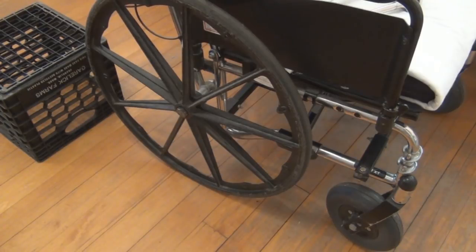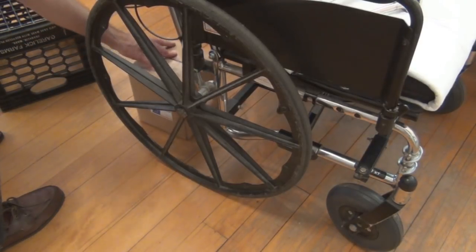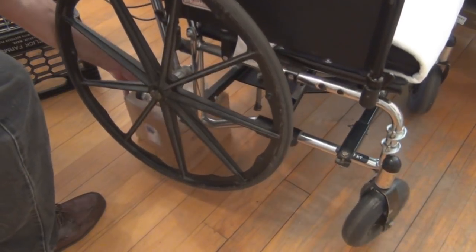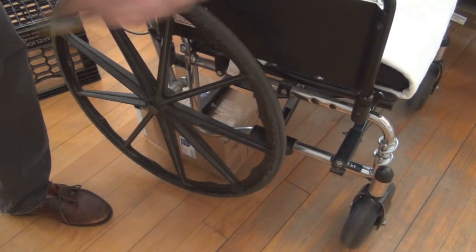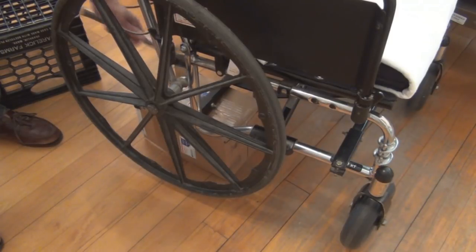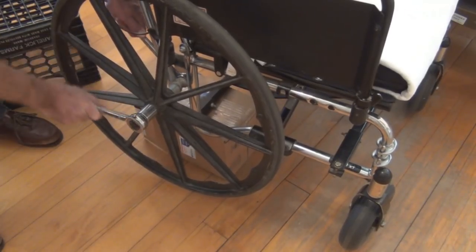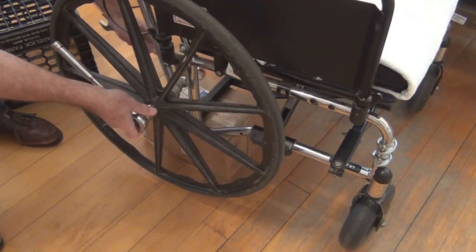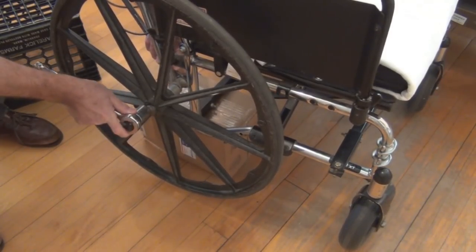I was thinking a milk carton for support but this box will be better. Yeah, I'll just support it with that box. This is one long bolt that comes off with a spacer — this might be more involved than I thought.